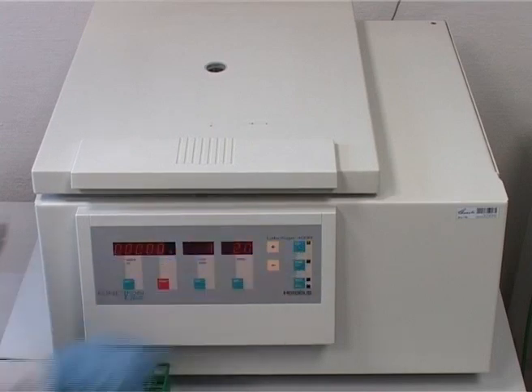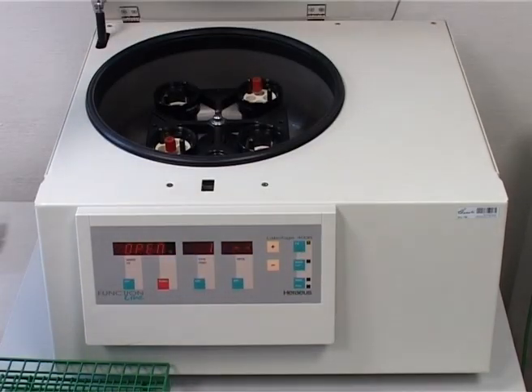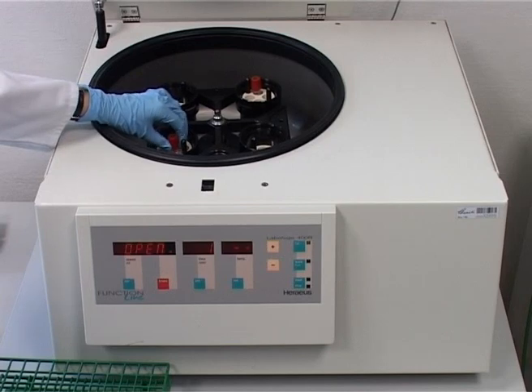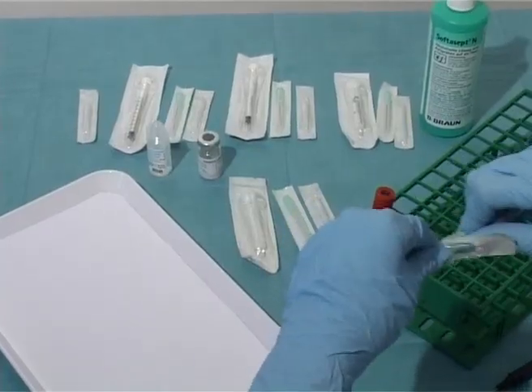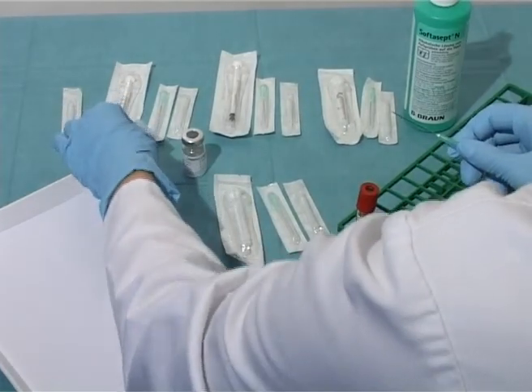After the centrifuging, the sample tube is carefully removed and transported upright to the workstation. The preparation of the injections takes place at a clean workstation.